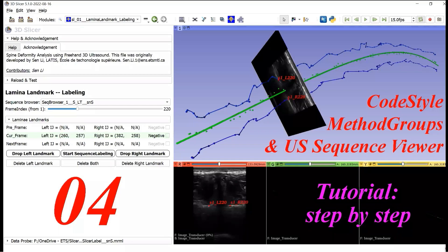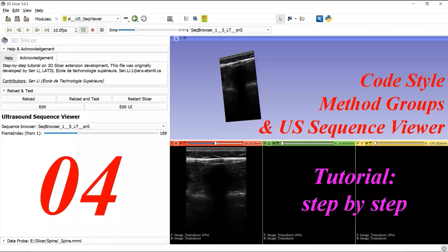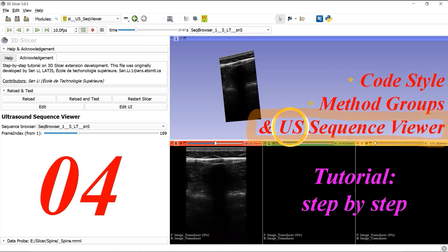Hello, welcome to the step-by-step tutorial on the development of 3D Slicer Extensions. My name is Sen Li. Starting from this video, our custom module will be related with ultrasound sequence. We will discuss the code style, arrange methods in the widget class and logic class, then develop an ultrasound sequence viewer in this video.